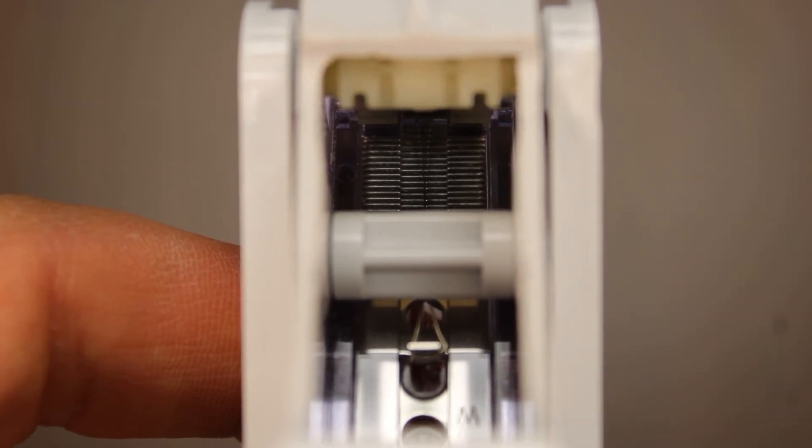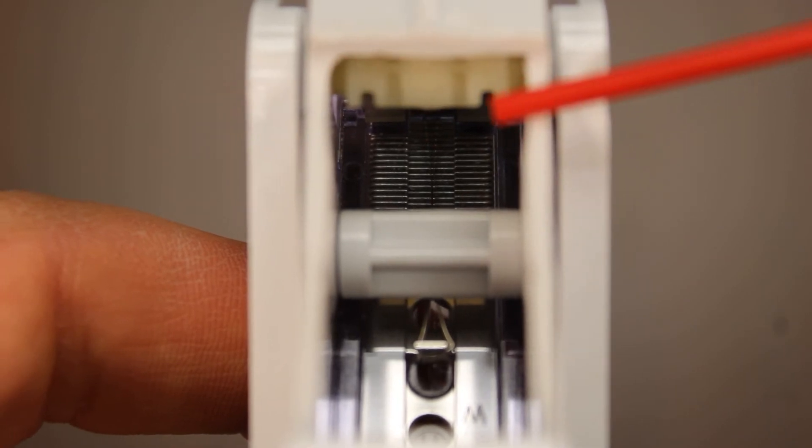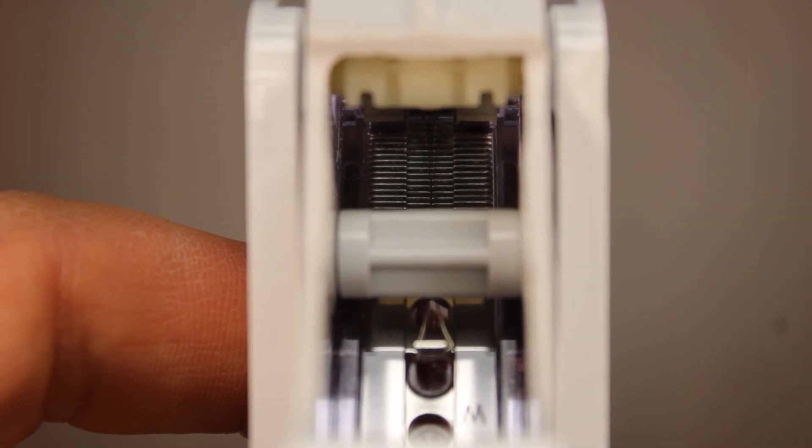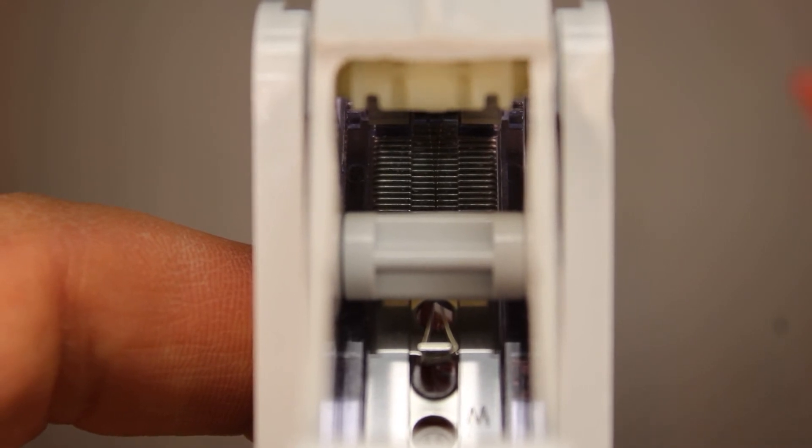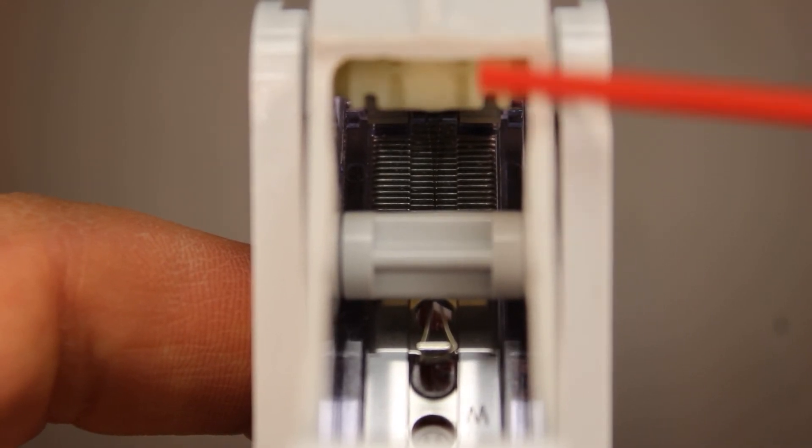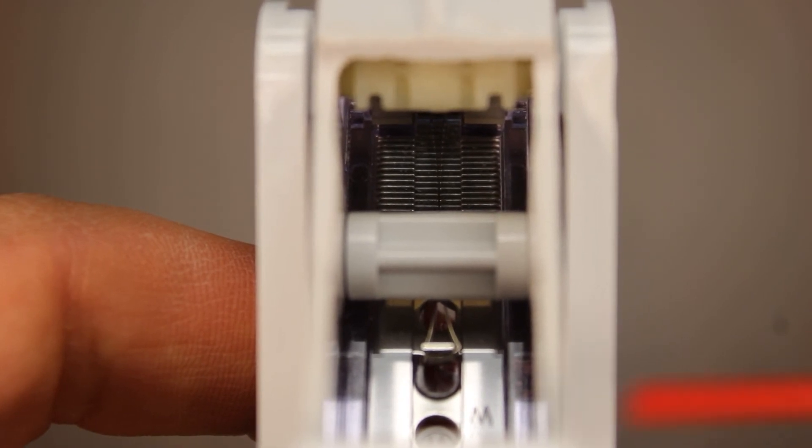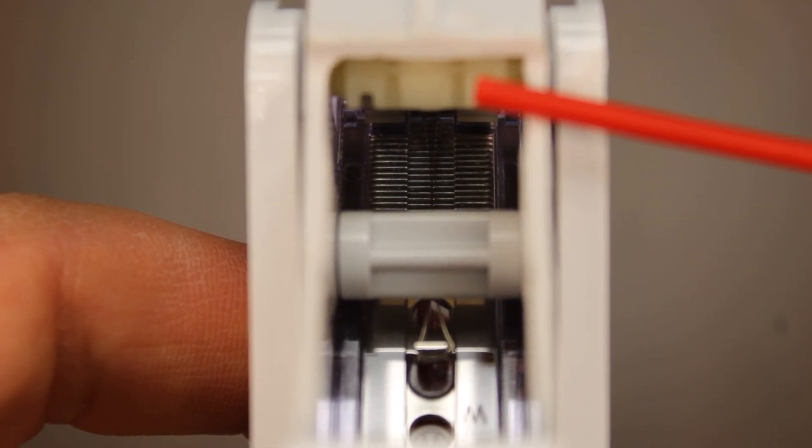The spring exerts force on the staples in this direction, so that when one is discharged from the end of the device, the spring seamlessly pushes the remaining staples forward, ready to be deployed.